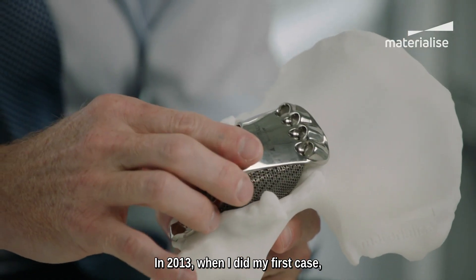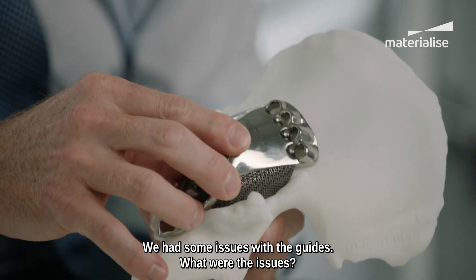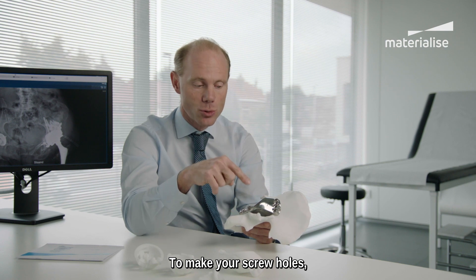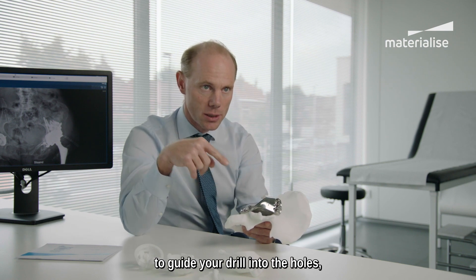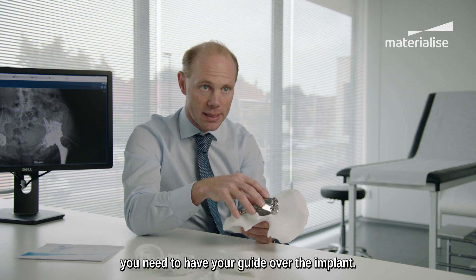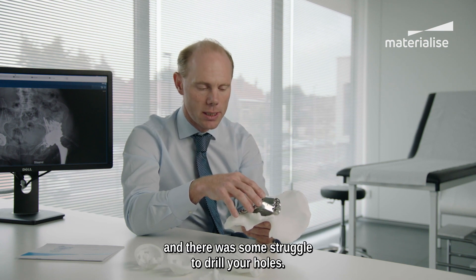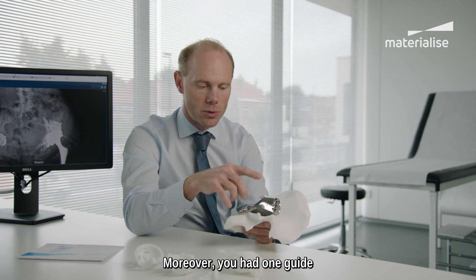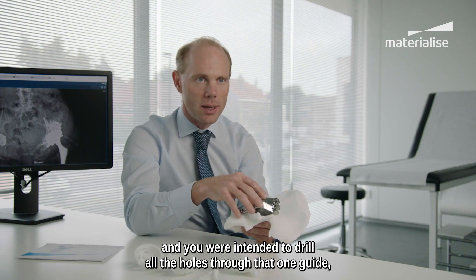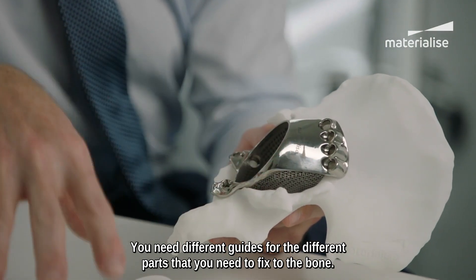In 2013, when I did my first case, the guides were sometimes a problem — we had some issues with them. The guides to make your screw holes, to guide your drill into the holes, required you to have your guide over the implant. Sometimes you had a conflict with some bony structure or tissue structures, and there was some struggle to drill your holes. Moreover, the guides were intended for one use — you had one guide intended to drill all the holes through it, which in practice is not possible. You need different guides for different parts that you need to fix to the bone.